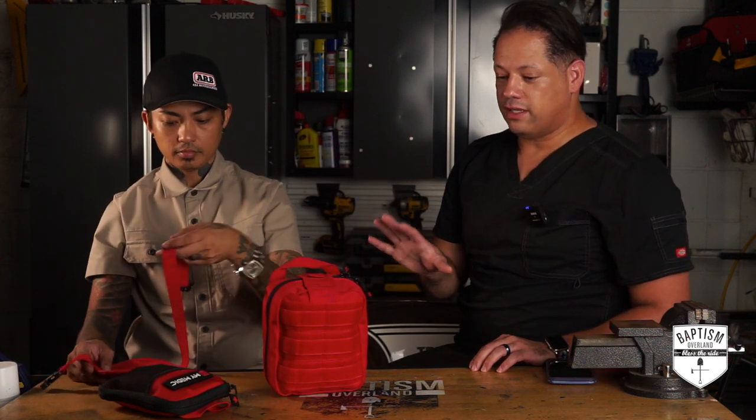One of the things I'm already liking is the packaging and accessibility. Anytime you're in an emergency, you want to be able to just grab what you need and access it quickly. You said to me before that if a first aid kit is not bursting at the seams — you did say that — from my standpoint, more is always better because you never want to be stuck in a situation where you don't have what you need. If stuff doesn't fly out at you when you open it, you probably don't have enough.